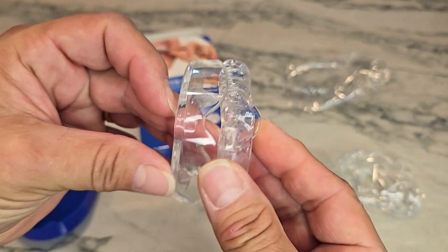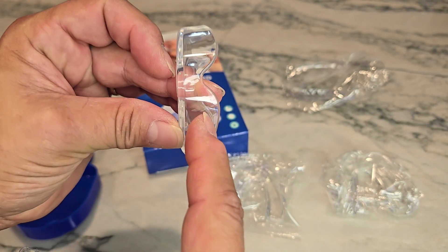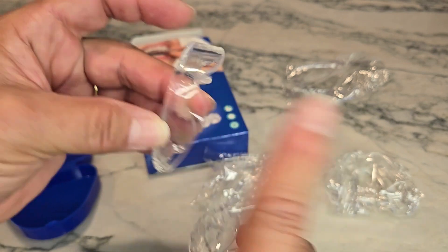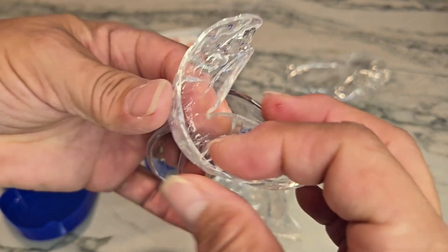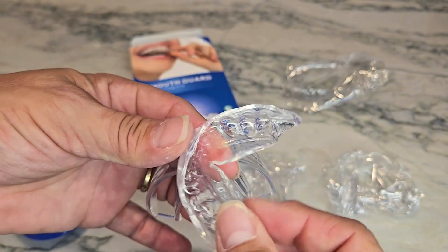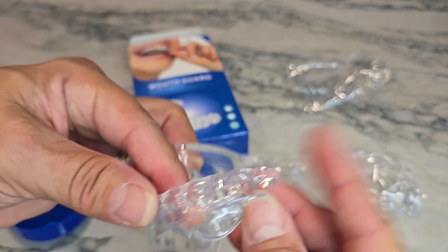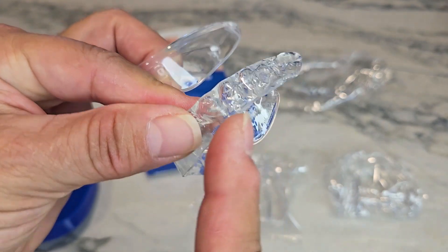These are the exact same size — if you compare one to the other, you can see how much I have trimmed off. What I would do is dip it in the water and smooth it out extremely thin, because I didn't want anything bulky in my mouth, making sure it was super duper stretched out.